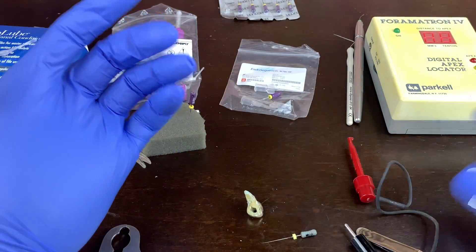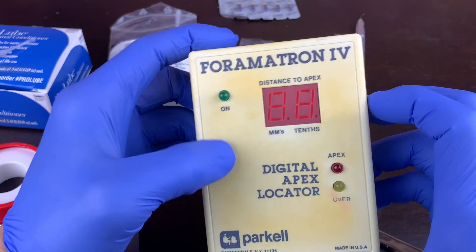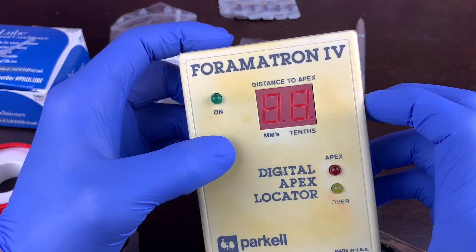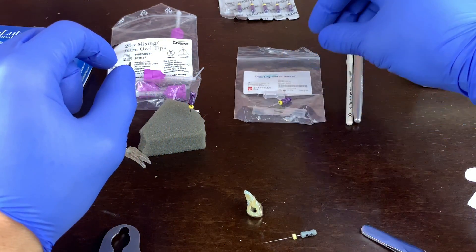So there's a couple of things. You don't need anything special. And if you've got a special forametron, you might want to try that or actually get a new one. Let me know if you've tried one of those. A buddy gave that to me about 10 years ago. I still haven't used it.